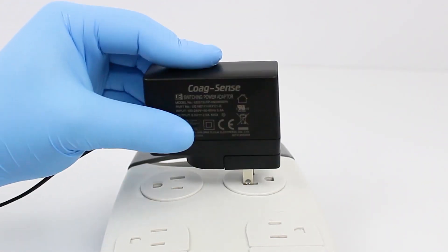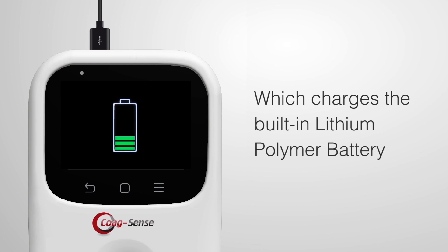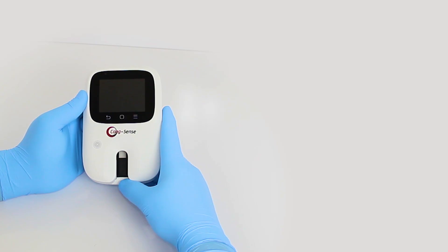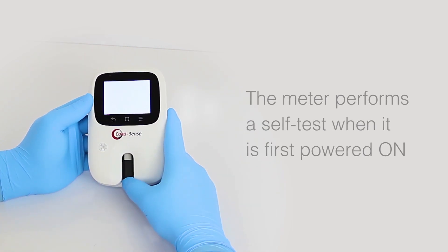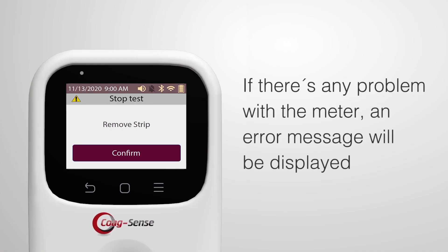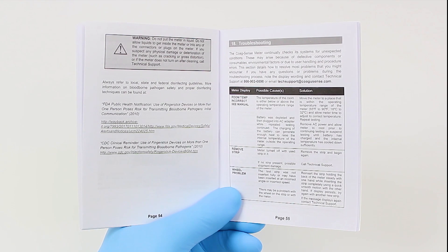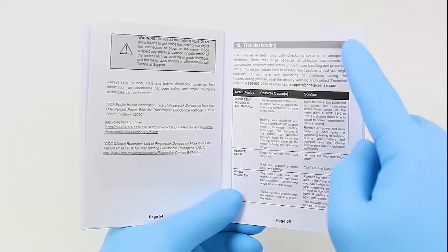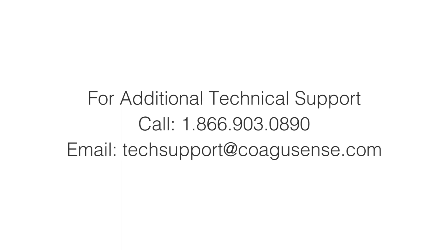The meter can be operated with a power adapter provided in the kit, which charges the built-in rechargeable lithium polymer battery. The meter performs a self-test when it is first powered on. If there is any problem with the meter, an error message will be displayed. For a complete list of error messages and troubleshooting steps, please refer to the troubleshooting section in the user's manual or contact technical support.